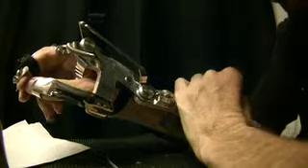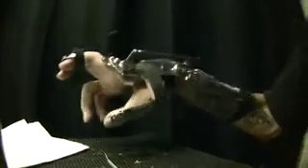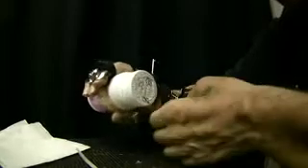Now if I want to hold bigger stuff, I push the button in, bring my wrist up, and let it snap into place. As you relax your hand, it opens up bigger — see how big it is? Now I can grab other stuff, for example a pill bottle. Once it's in your hand, it's there — it's strong. I didn't use my other hand; I don't have any function, but I was able to remove the top. To release it, you open your wrist. Sometimes it's harder to let things go than it is to pick them up. But you set it however you like. It's as easy as that.